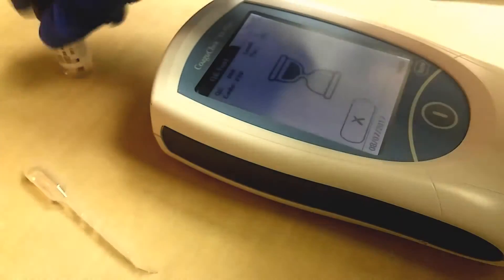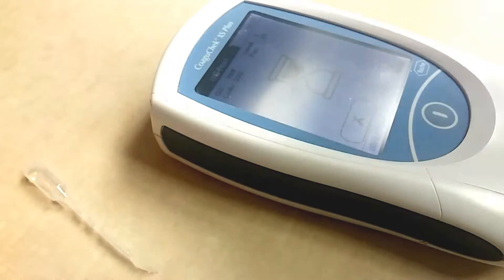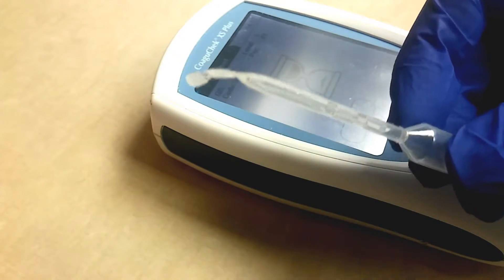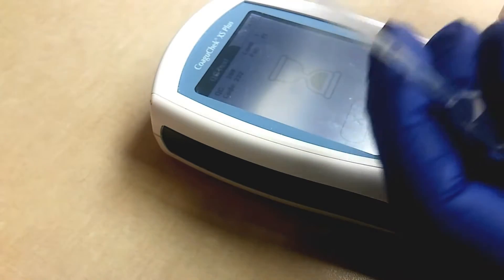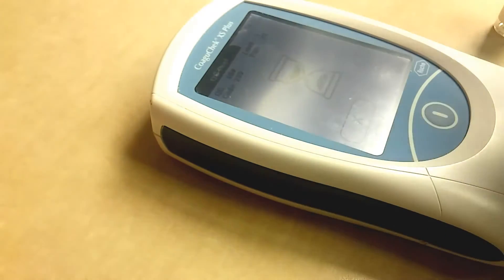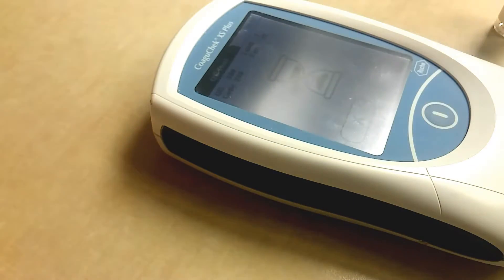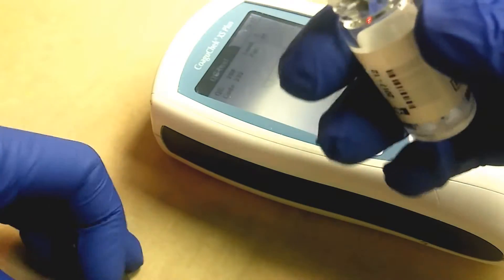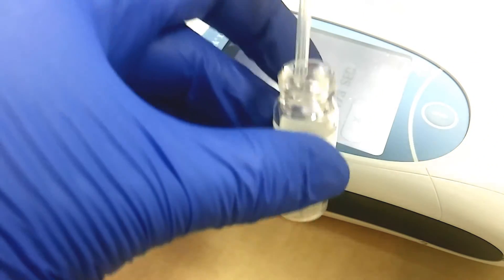First we'll do Level One — here's our Level One, 208. This is the saline or whatever's in the bottle. Here's your scissors and you're going to cut off the top like so, at a slant.